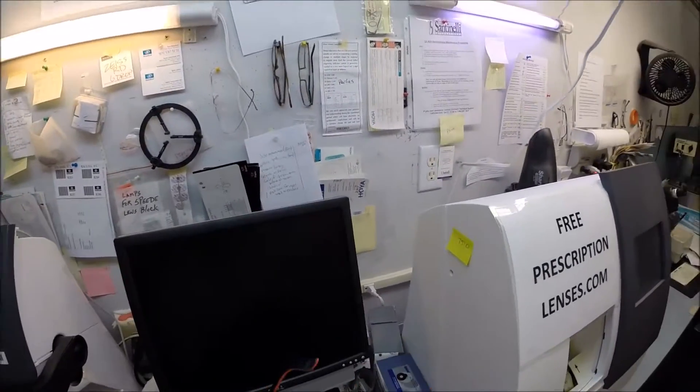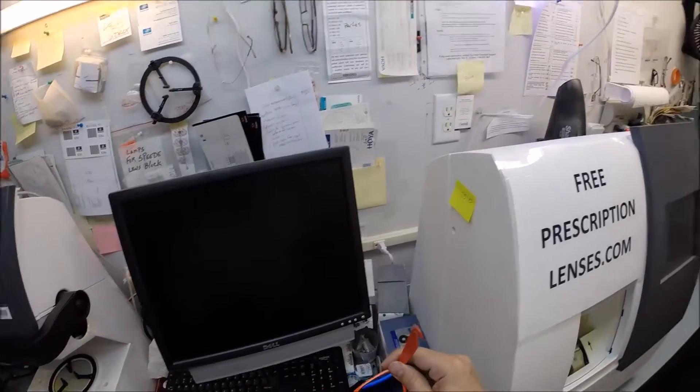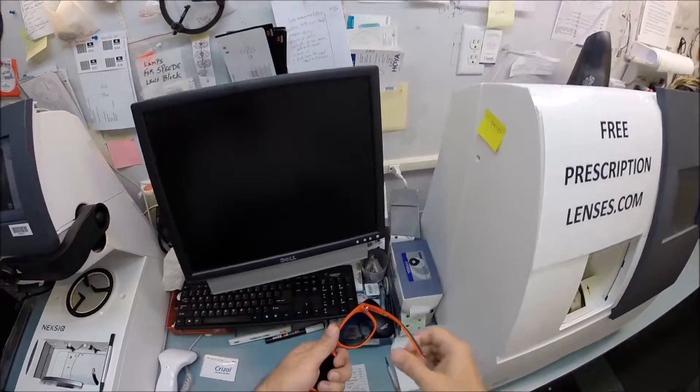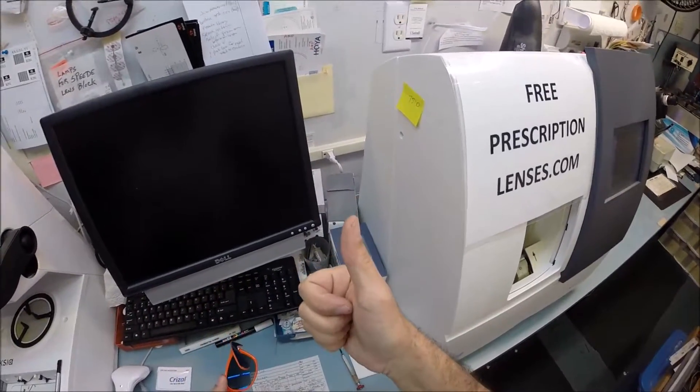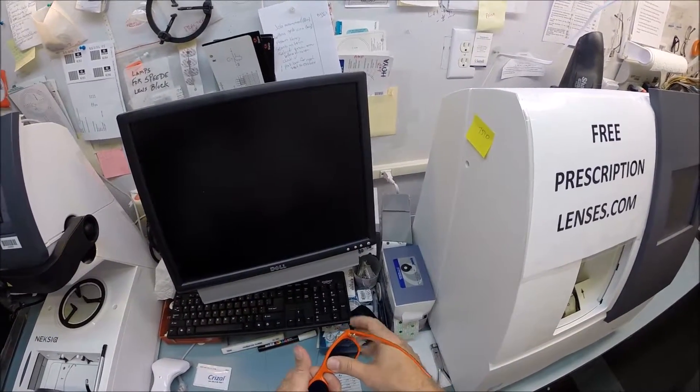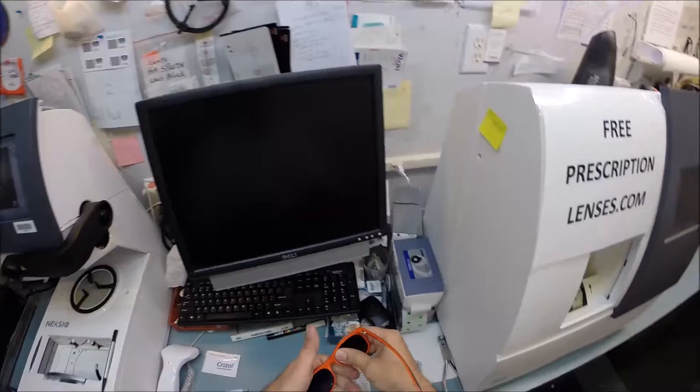In order to take out your original lenses, you turn the frame downward. I'm right-handed so I hold the frame in my left hand. You're always going to change the lenses with your thumb at the nose, always pushing down.